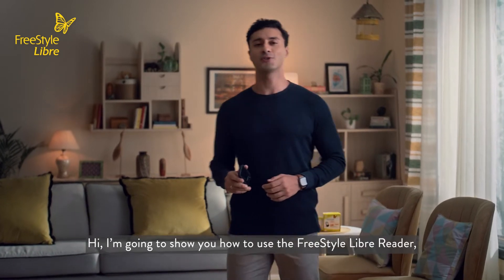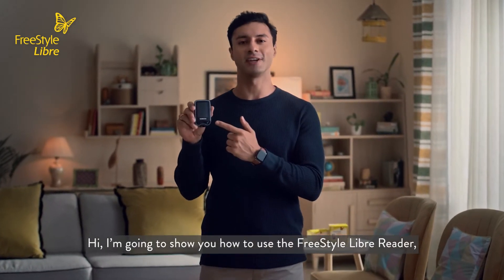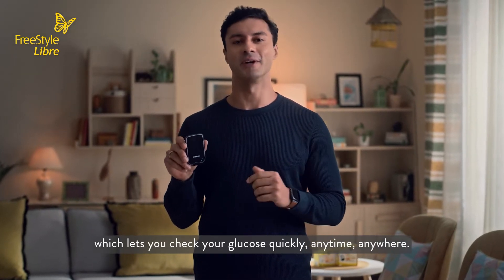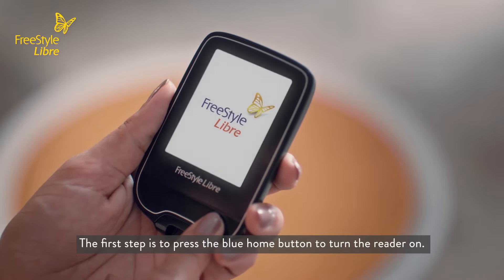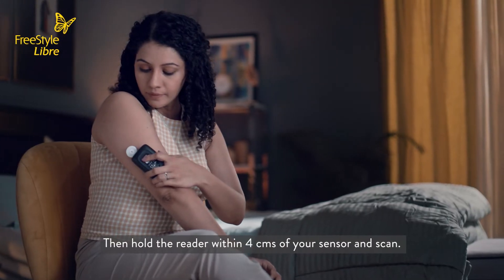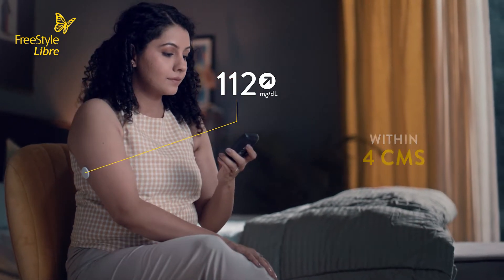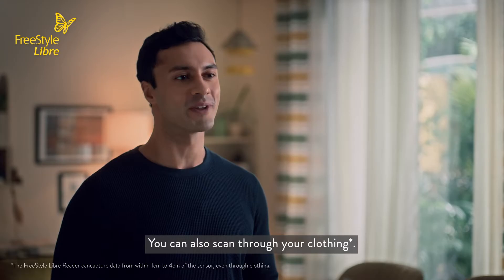Hi, I'm going to show you how to use the FreeStyle Libre Reader, which lets you check your glucose quickly, anytime, anywhere. The first step is to press the blue home button to turn the reader on. Then hold the reader within four centimeters of your sensor and scan. You can also scan through your clothing.